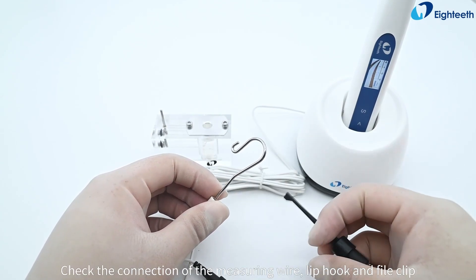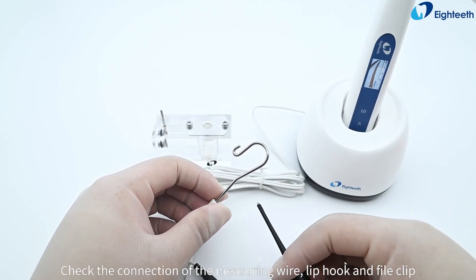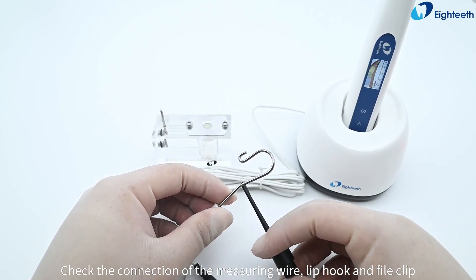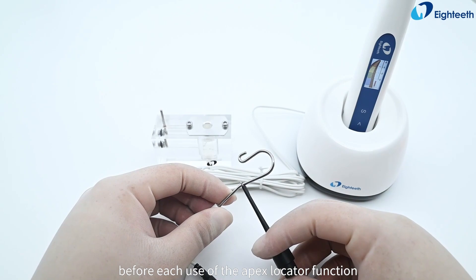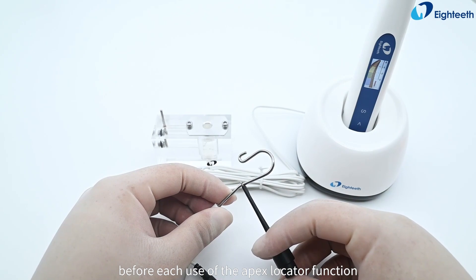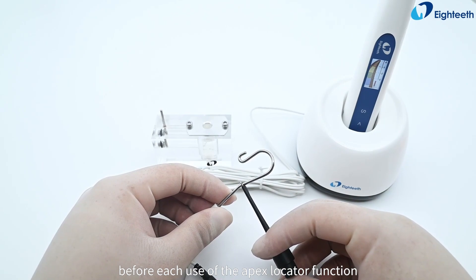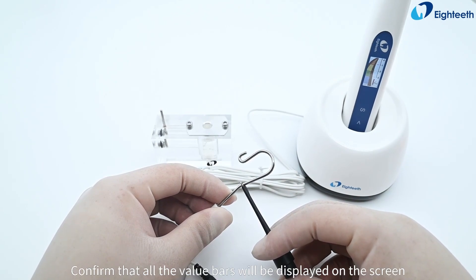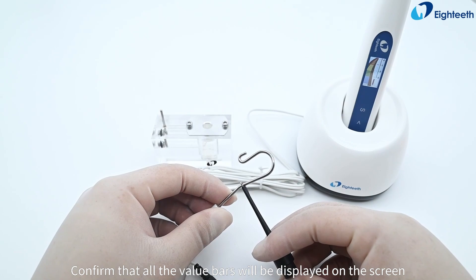Check the connection of the measuring wire, lip hook, and file clip before each use of the apex locator function. Confirm that all the value bars will be displayed on the screen.